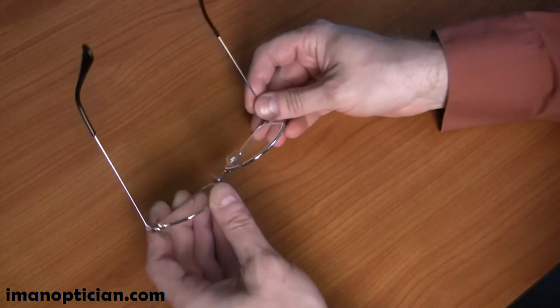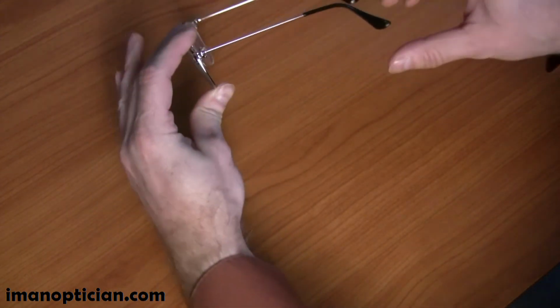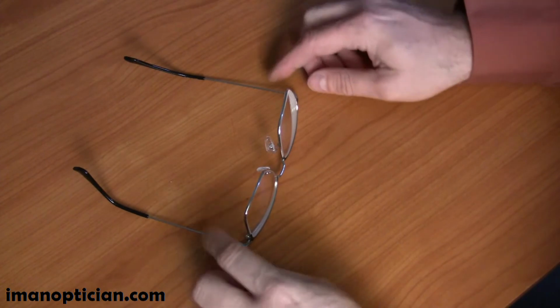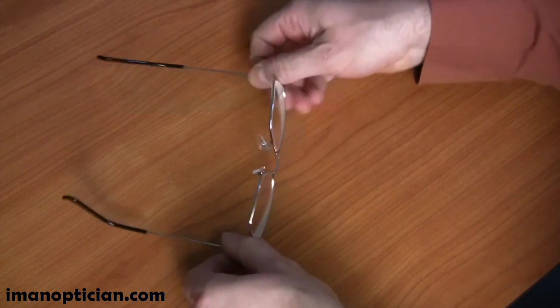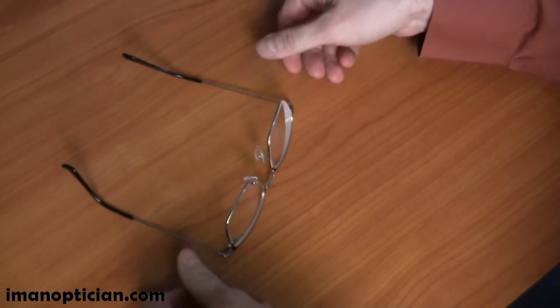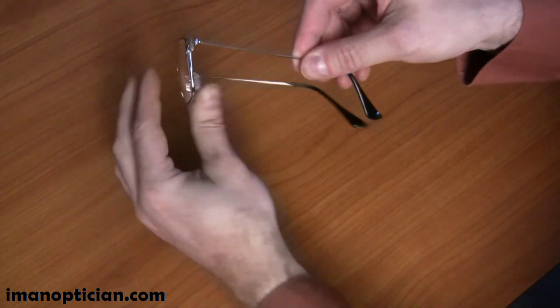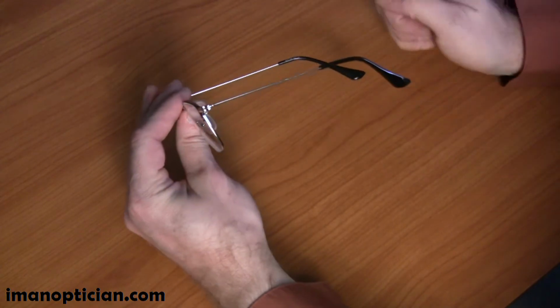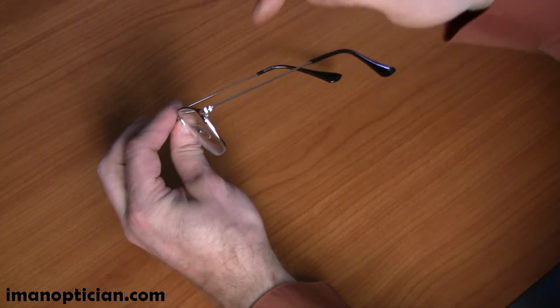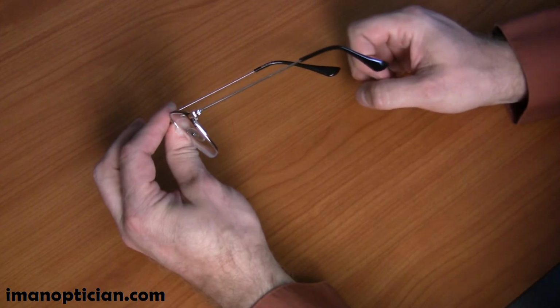For adjusting pantoscopic tilt, we're going to put the temple lower here. This is increasing the pantoscopic tilt, and you'll want to take a look at it and make sure that both are even. So as we bench fit that, we can see that side is up now, and we'll want to adjust this one to the same, and therefore we increase this angle as we move this temple down a little bit. Again, on a plastic we may have to heat that area depending on how it's oriented, and as we get into a thicker temple, it's sometimes a little bit harder to adjust that pantoscopic tilt.